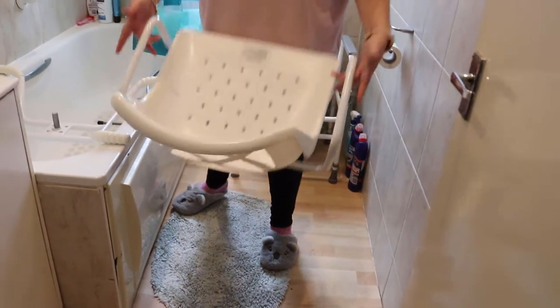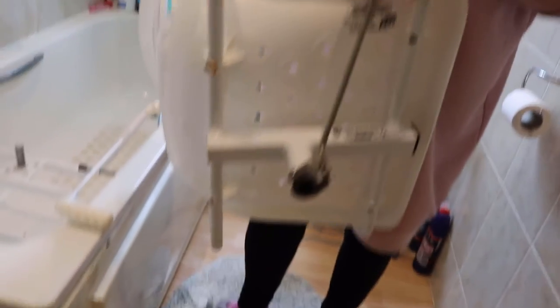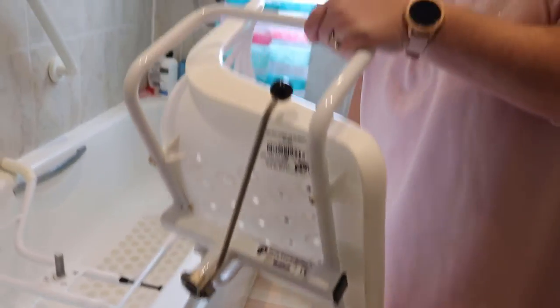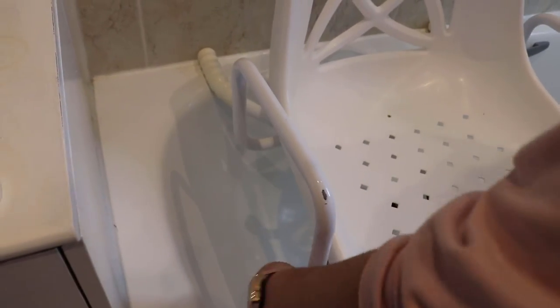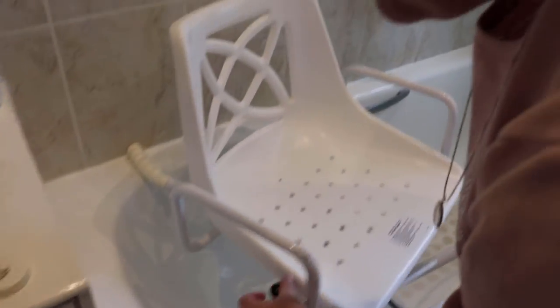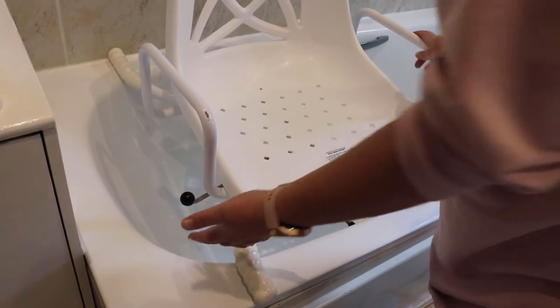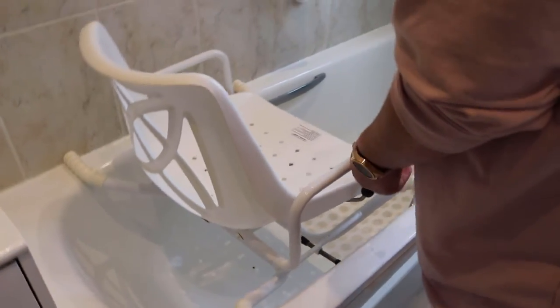And then your chair — not that heavy, just to let you all know — has a handle here which locks it in place when turning to place it on the bath. Just lining it up, give it a wiggle — one bath seat! And then you push the handle down to lock it in place so it won't move anywhere. And then once you are in it, you lift the handle and you turn yourself and lock it so you are safe and secure.